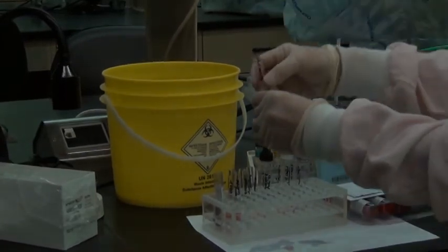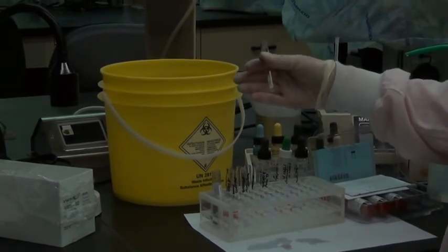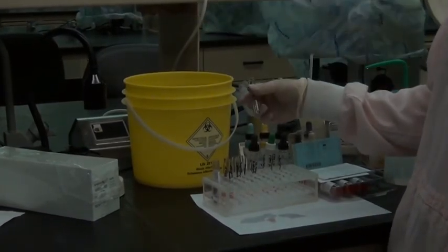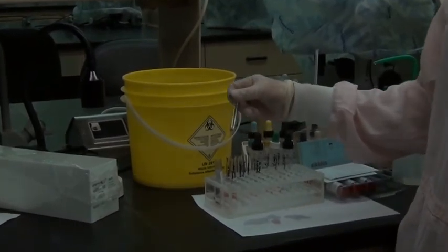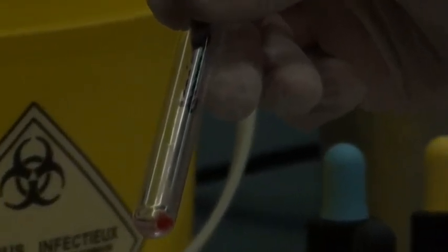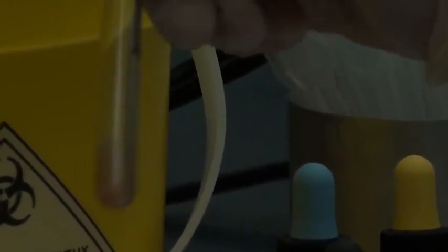So here's screening cell 3. Turn the button so it's against my hand. Seems to preserve cells better that way. And nice strong dump. Strong dump. Come back, get rid of that last little bit. And the cell button is nice and dry. You don't want to have much more saline than that left in your tube. Okay, we're going to give that a waggle. And if this was our third, if we had finished 3 washes, we would proceed to add our anti-human globulin.